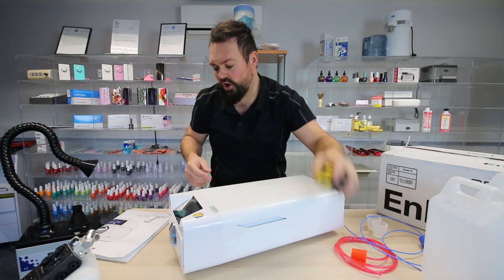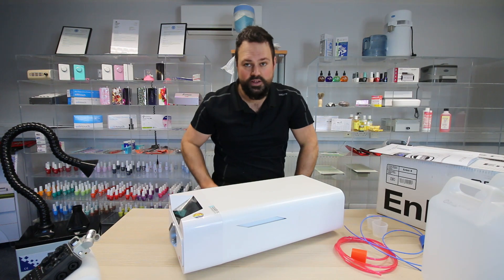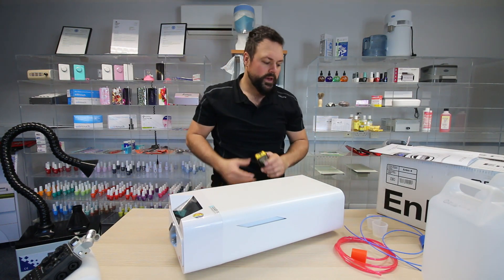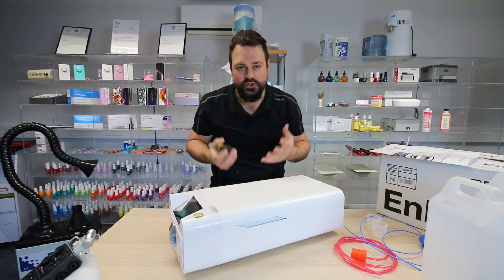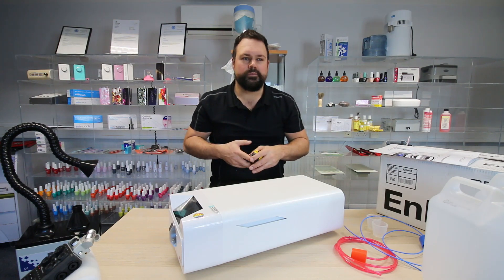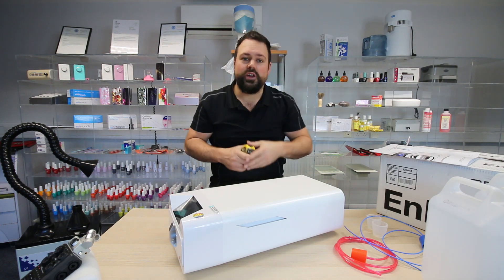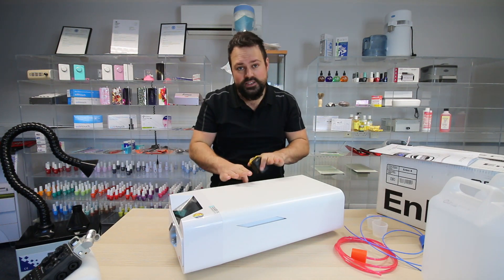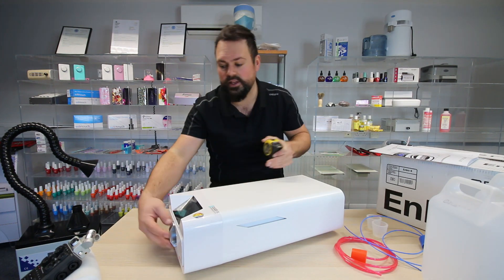In terms of the dimensions of the drawer, it's a 2.7-litre autoclave, which sounds very small — and it is quite small for an autoclave. Autoclaves are usually 18, 20, 22, or 24 litres. You can still get two or three trays of instruments in. But the fact it's small doesn't mean it can't be used, because of the 7-minute cycle — it solves its own problem, we believe.